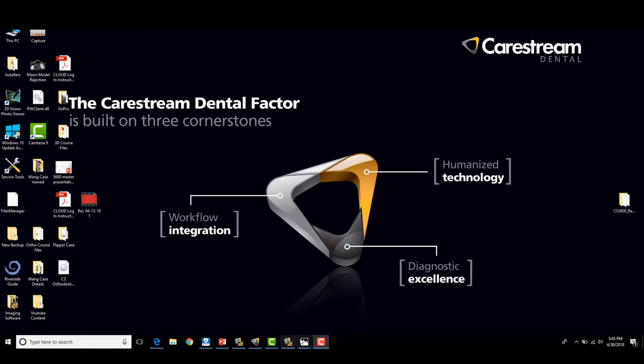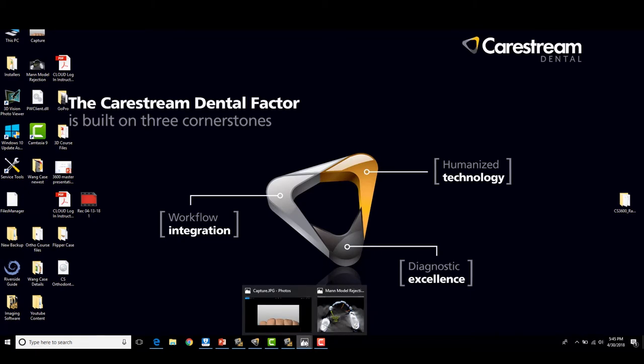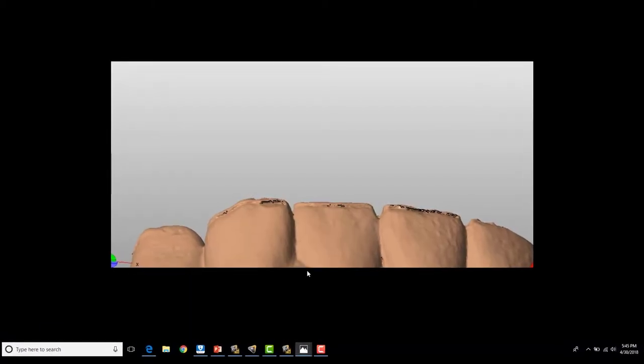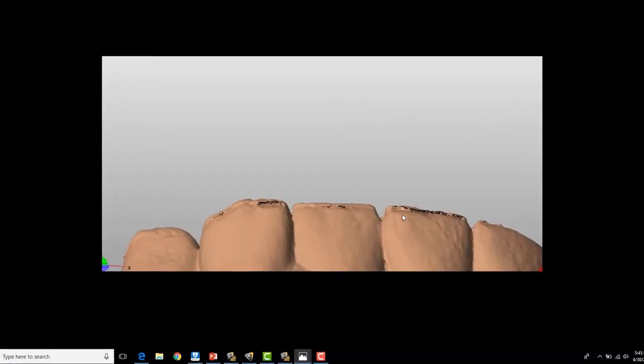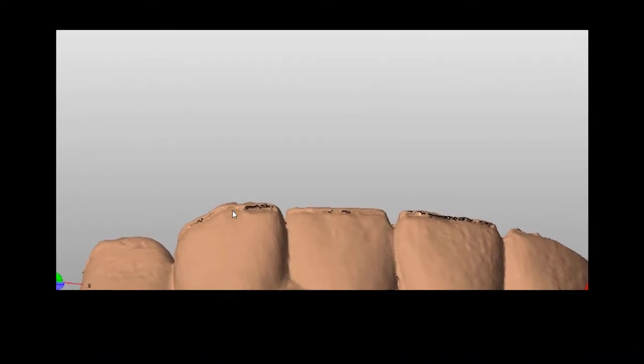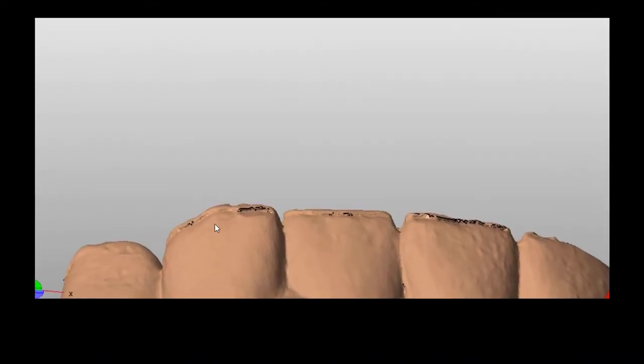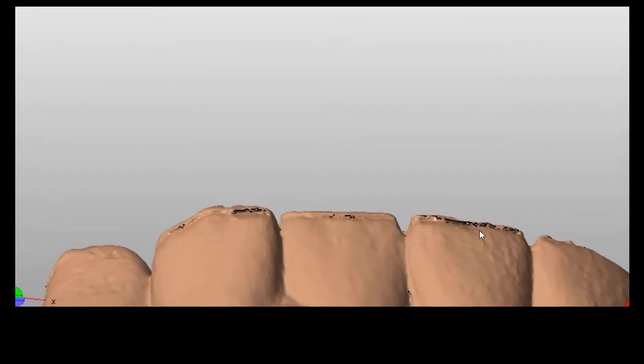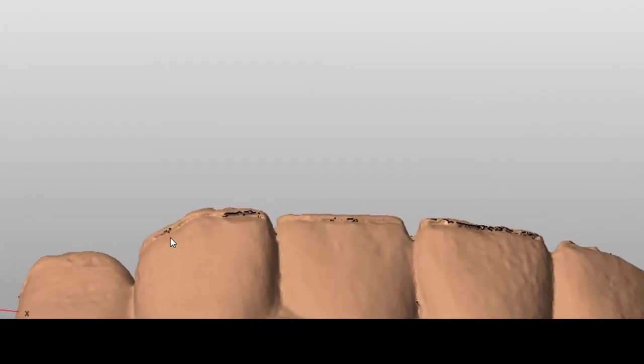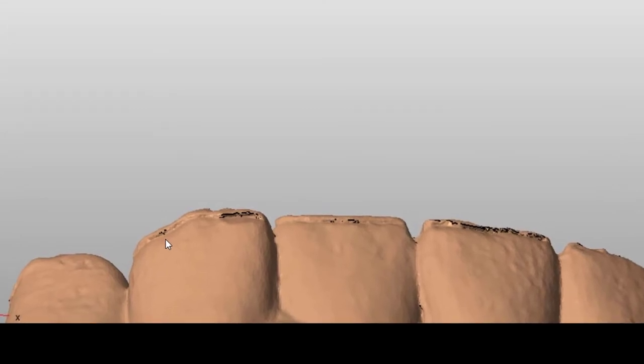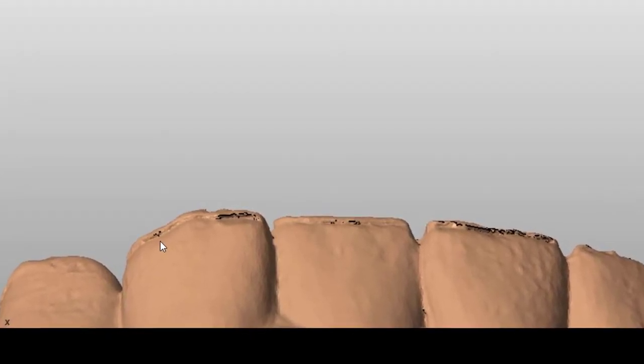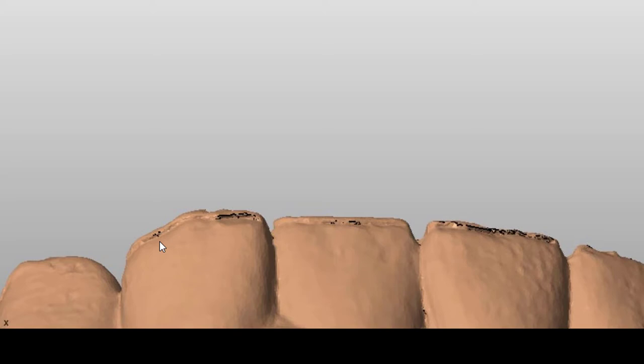This first one was sent to me. This is pretty clear cut and you can see the meshing errors caused at the incisal edge, which clearly would affect the fit and the stability of a guide fitting over the occlusal aspect. So that's one case, something to look for in the future to make sure you're not getting these types of errors. And I'll show you how to correct that as well.